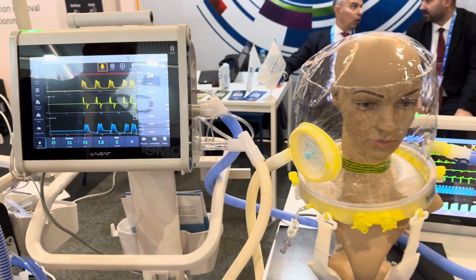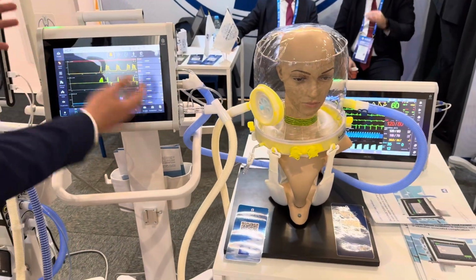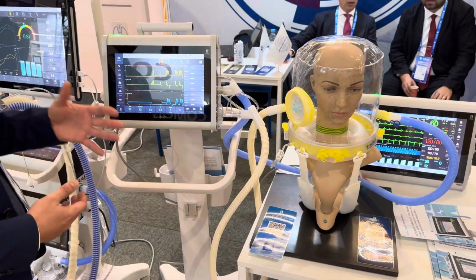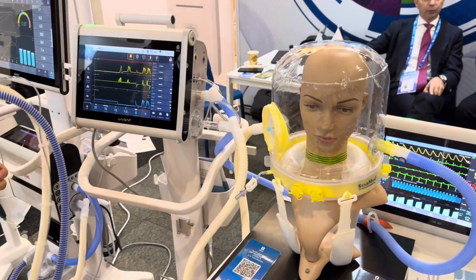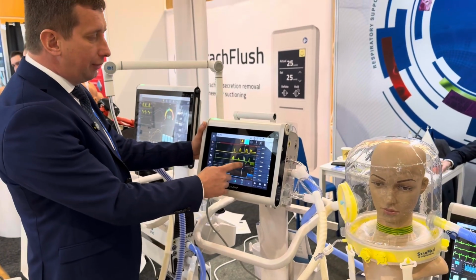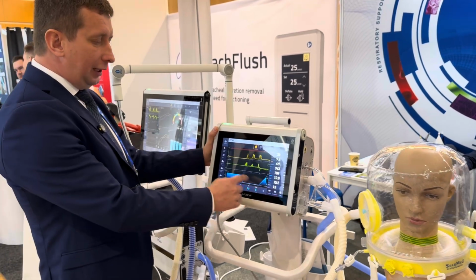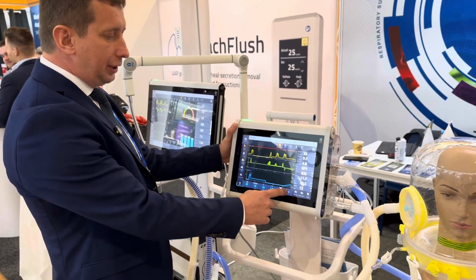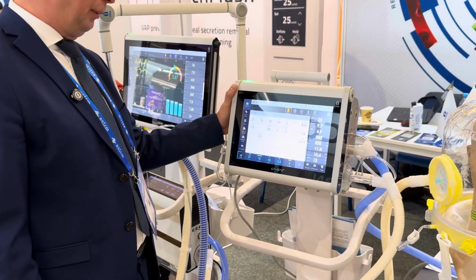During the ventilation process, the device demonstrates curves, digital data, and settings buttons that the customer can adjust and customize according to his needs. The device has a possibility to freeze curves, to make measurements of all of the parameters, and also to have direct access to main parameters, and also open the additional parameters for setup.